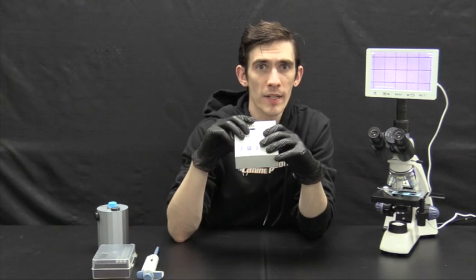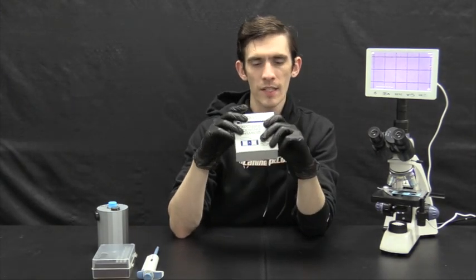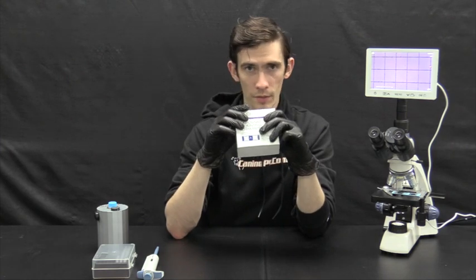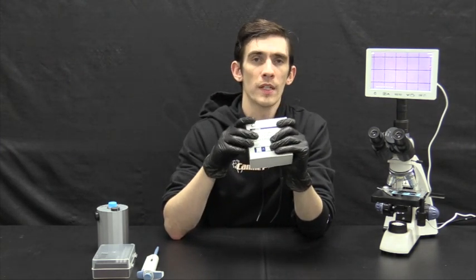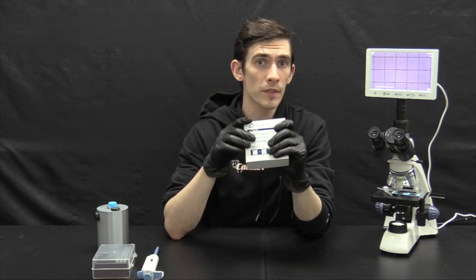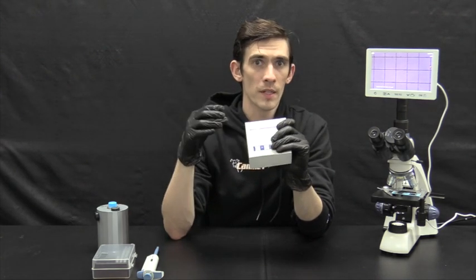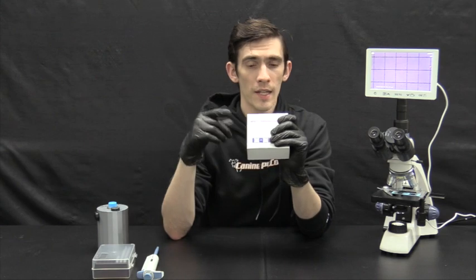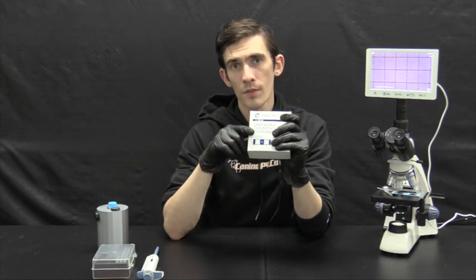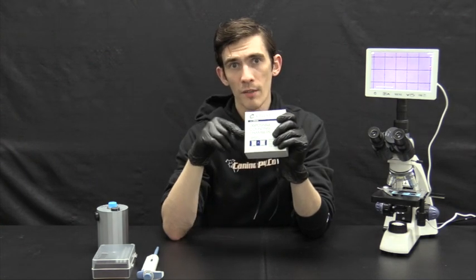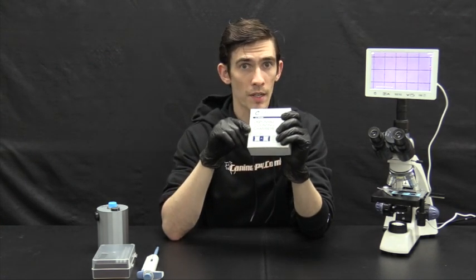So getting a professional sperm analysis doesn't guarantee that each sperm sample that follows is going to be in that same range. So again, as we mentioned before, ejaculating the animal too often can result in lower counts, missteps in processing, adding too much extender, and a variety of other problems can cause your ship semen or live breeding to have inadequate dose counts.